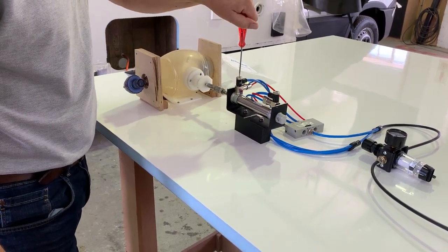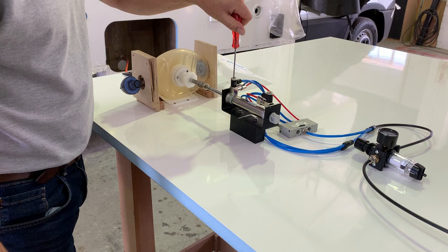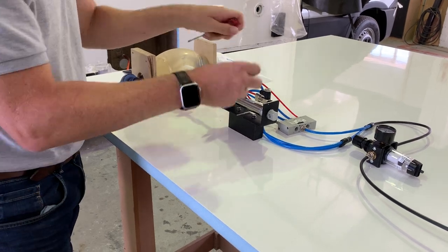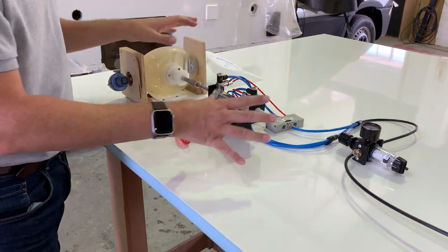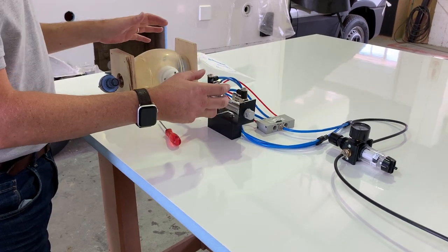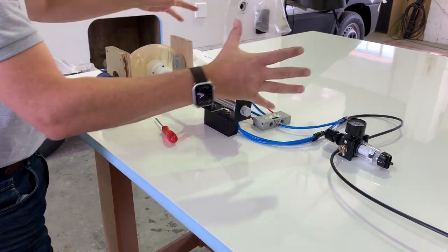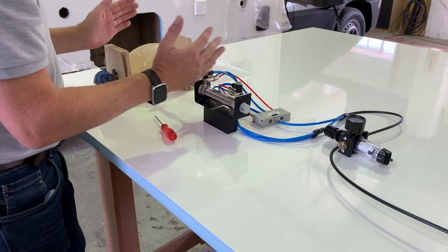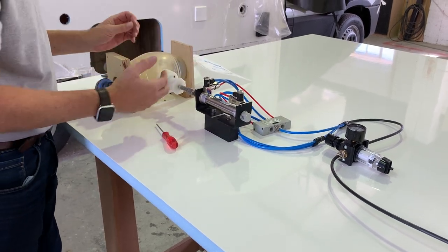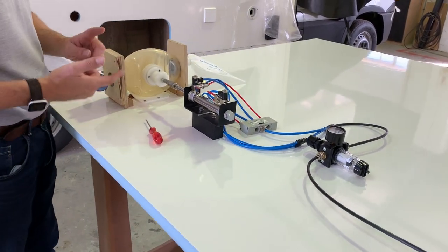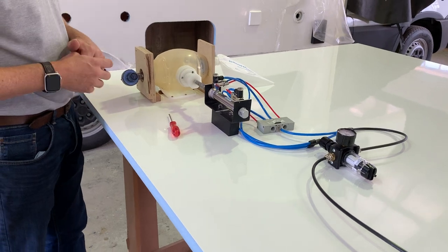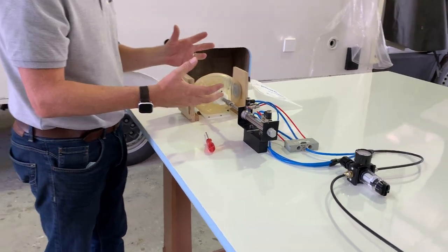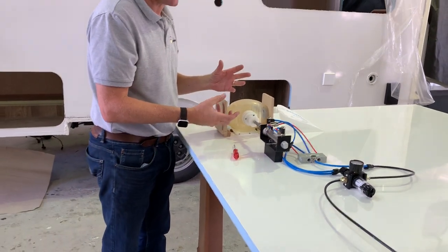That's adjustable like that. We are able to make obviously a much better system where everything is controlled by a chassis and a casing, so we can encase this quite compact. We have facilities here to do molds, to make it obviously a very nice bedside machine.